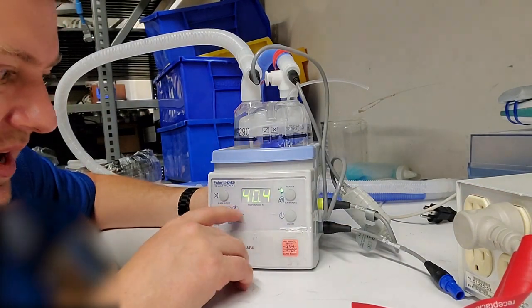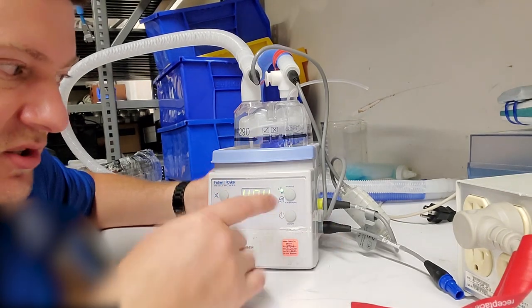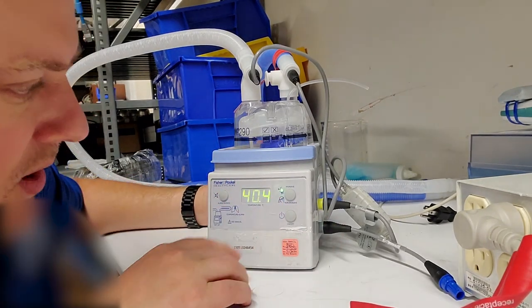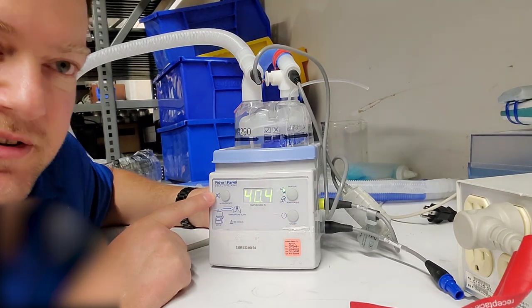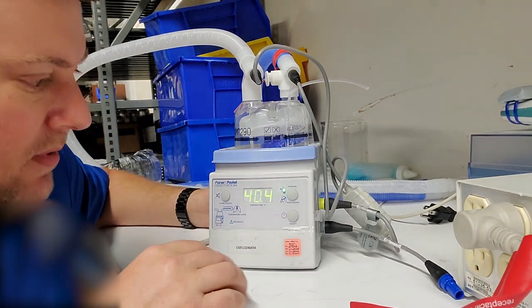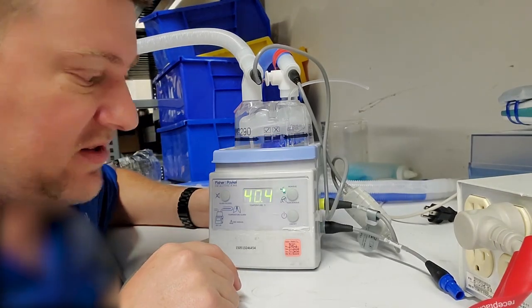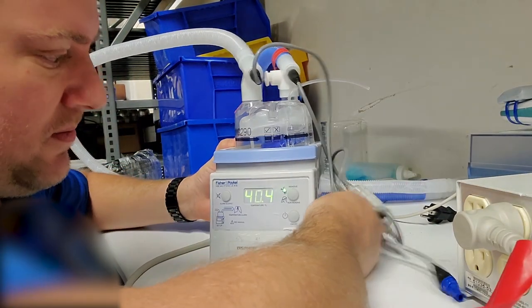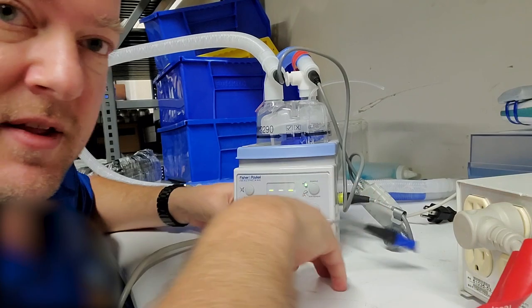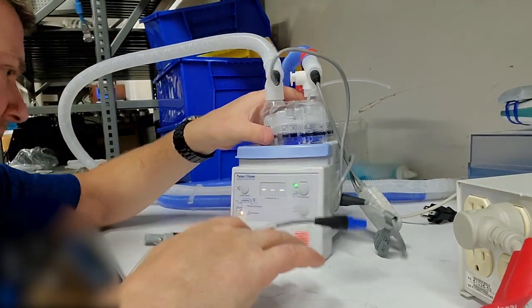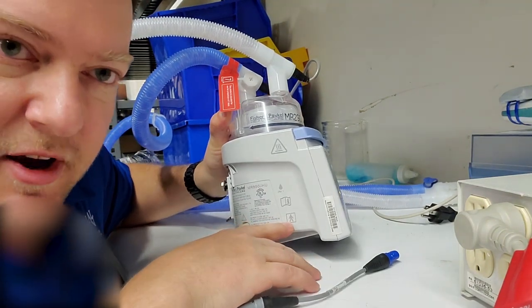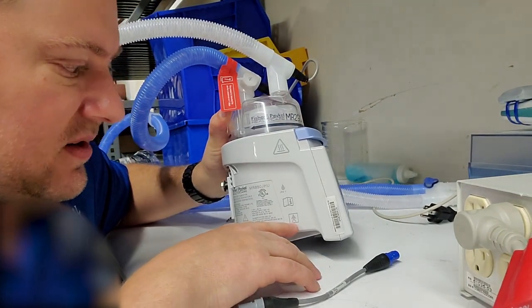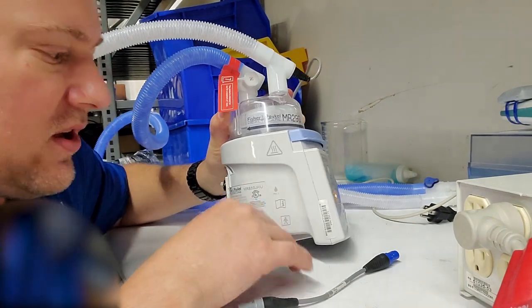And there it goes, it goes into heat and it's actually working. So this is a mode button, this is the power button, and this over here is the alarm silence button. That's all the functionality of this device; it's really simple. Another thing I should probably point out is that this is an isolated device—it's double insulated, so that's with the little square with a square in it.